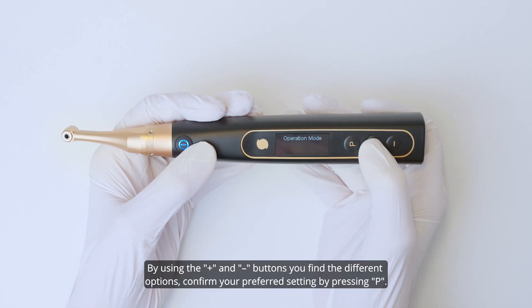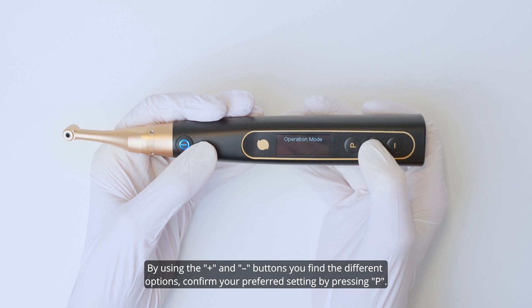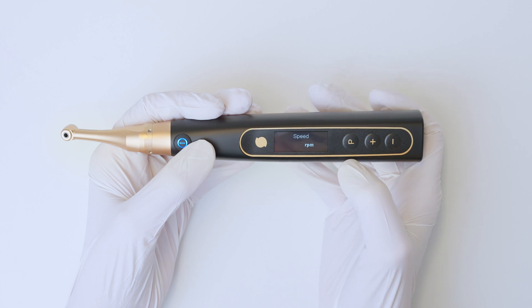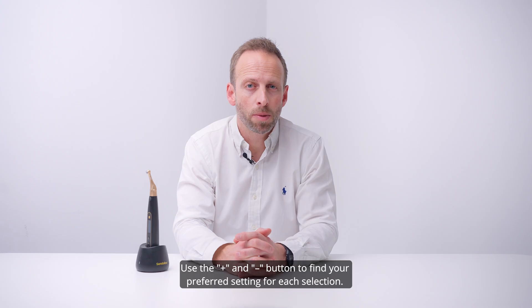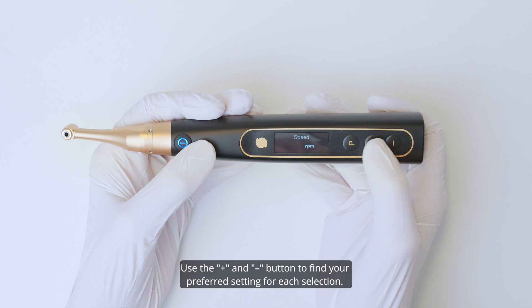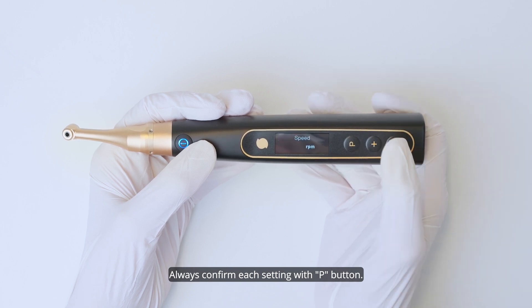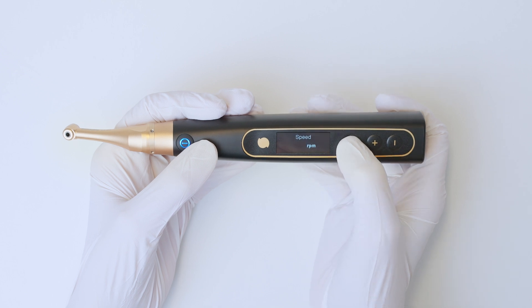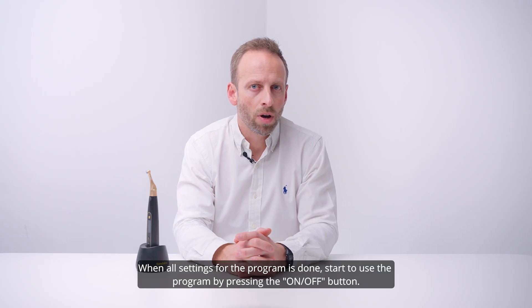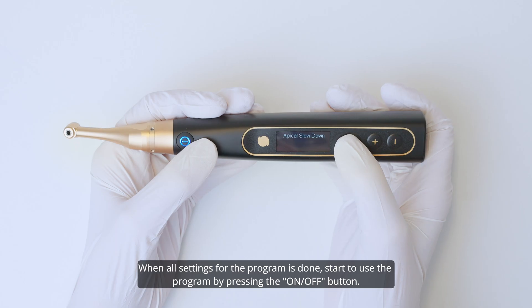By using the plus and minus buttons you find the different options. Confirm your preferred setting by pressing P. Use the plus and minus button to find your preferred setting for each selection, and always confirm each setting with the P button. When all settings for the programme are done, start to use the programme by pressing the on/off button.